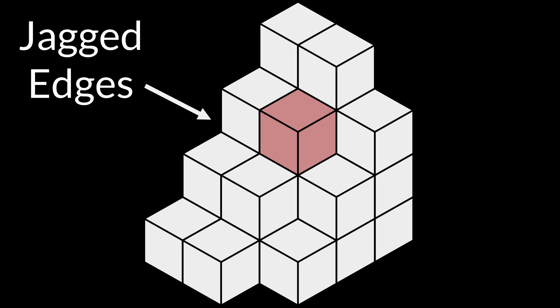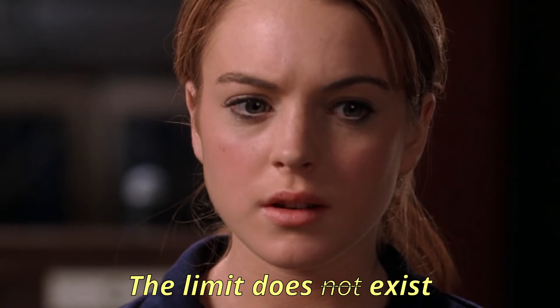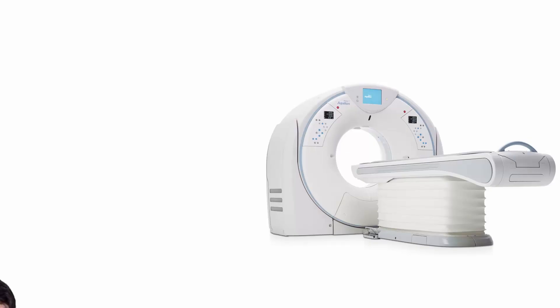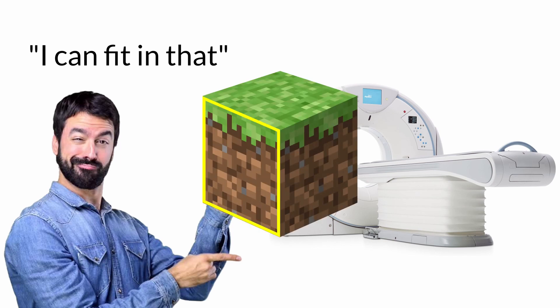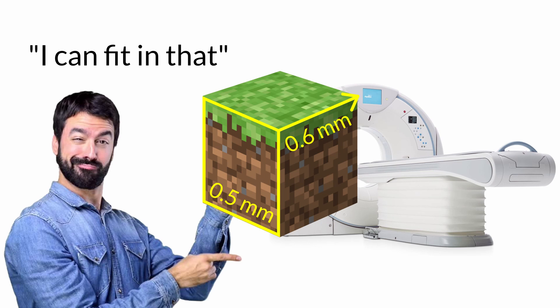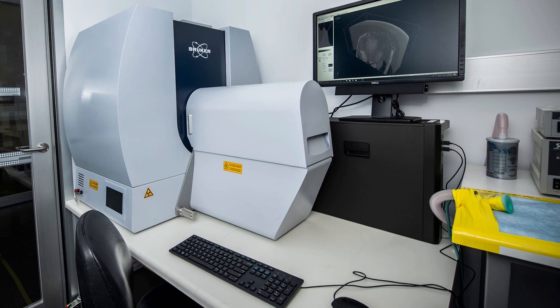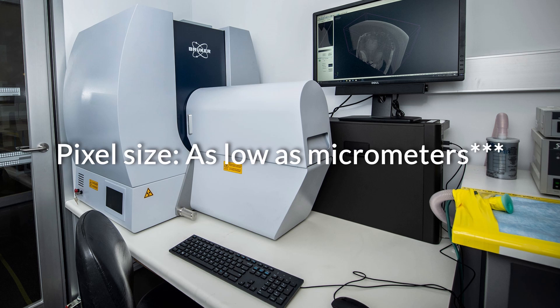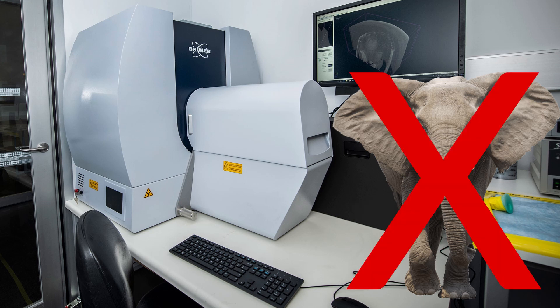The jagged edges mean that you lost some data somewhere in your scan resolution and slice thickness. So the higher the resolution and the smaller the scan thickness, the more accurate your 3D model will be. Most scanners capable of scanning a full-grown human have a minimum pixel size of around 0.5 millimeters and a minimum scan thickness of around 0.6 millimeters. Smaller machines like Micro CT can reduce this substantially, but they are smaller, so you need to leverage a scanner that fits your needs.